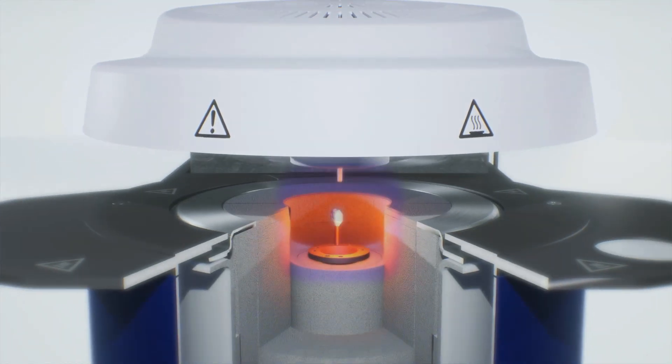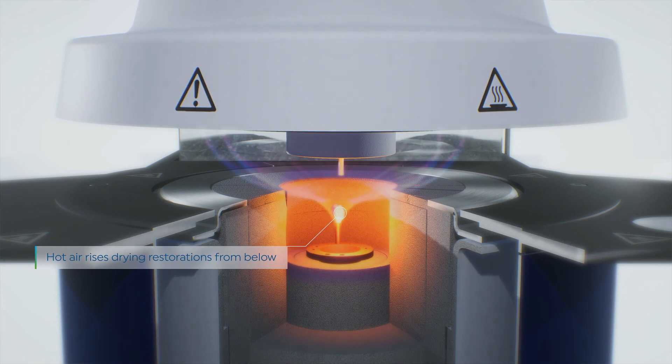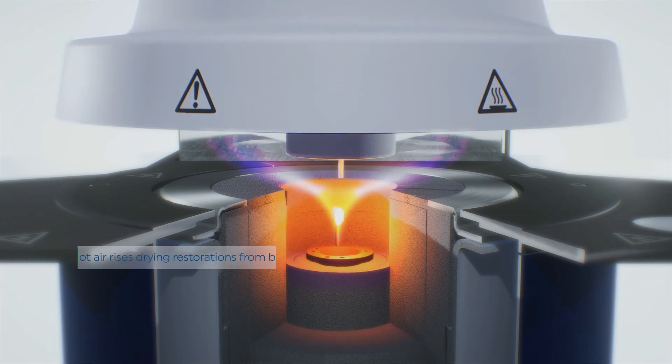This significantly speeds up the pre-drying time and thus the entire crystallization process of your IPS eMAX CAD restorations.